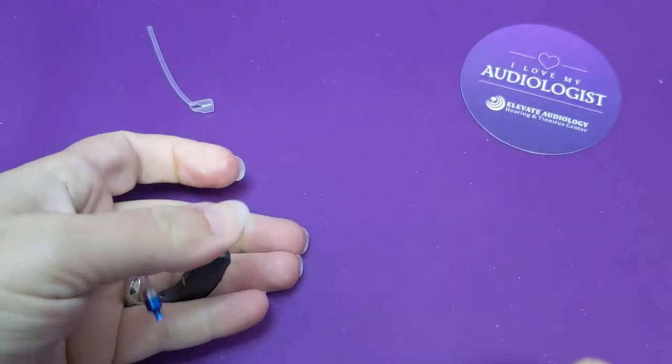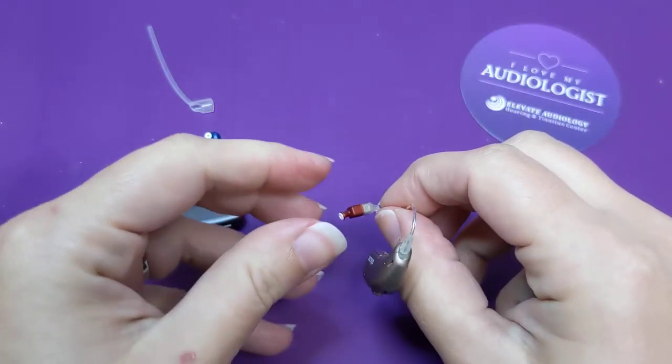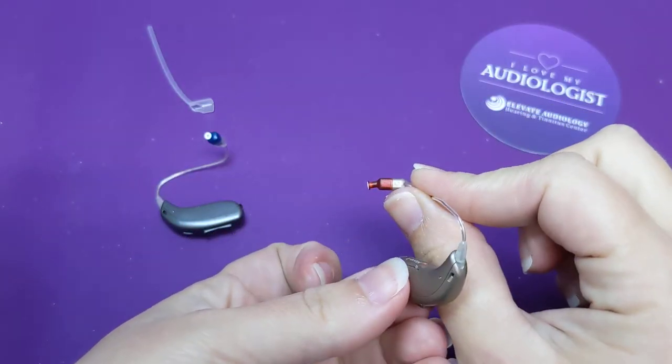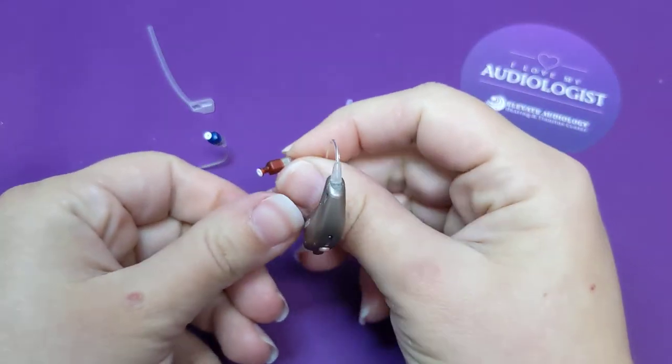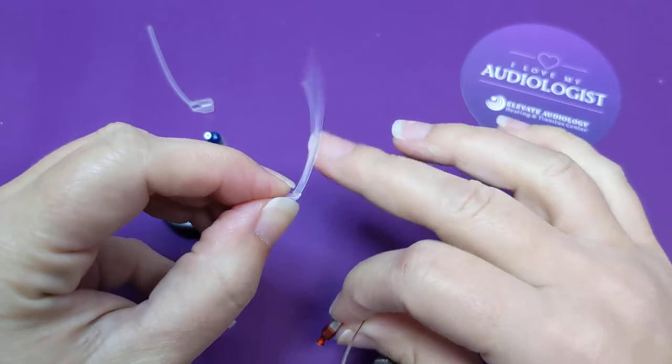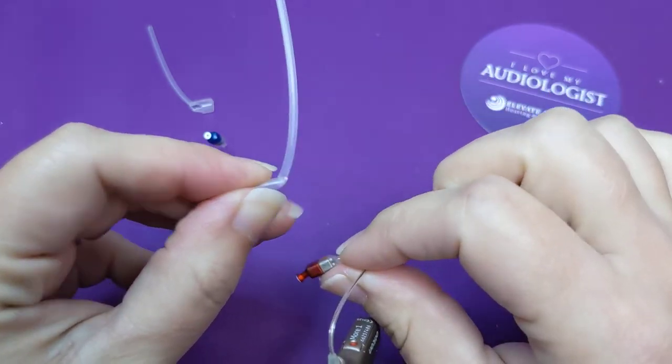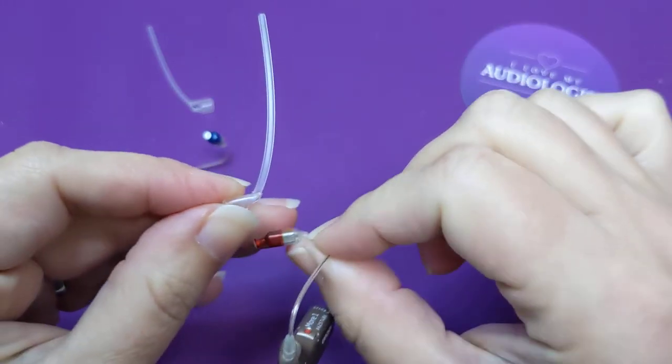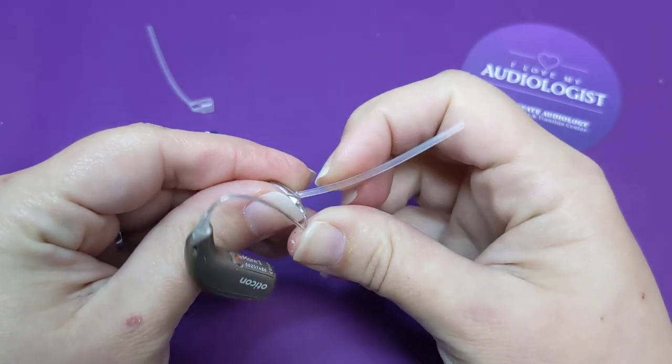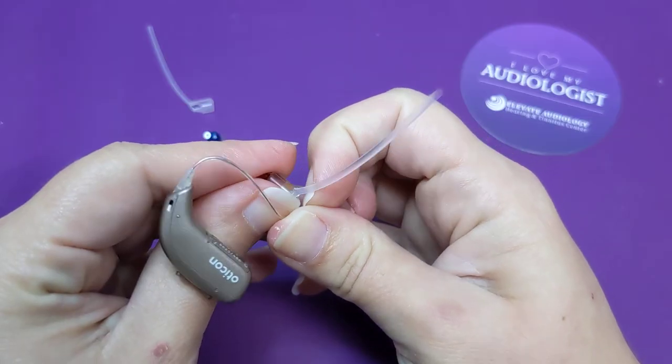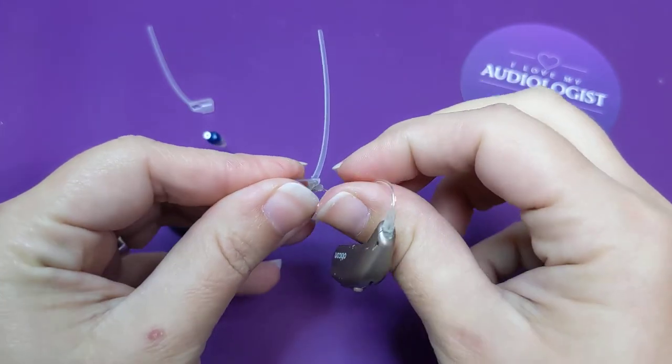I'm going to do the same thing here with the right side. So this is a right one, right 85. So if you follow the rule, instead of just putting this on top of the number, then it will just slide right on there. And I pull it back. There you go.